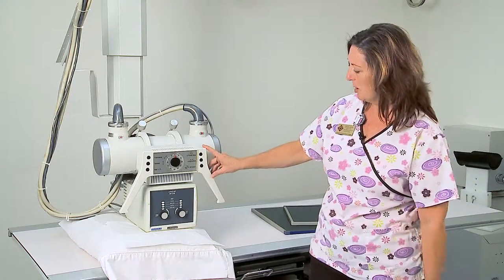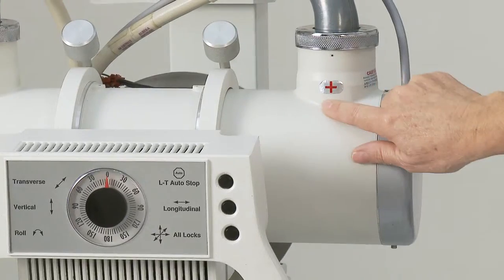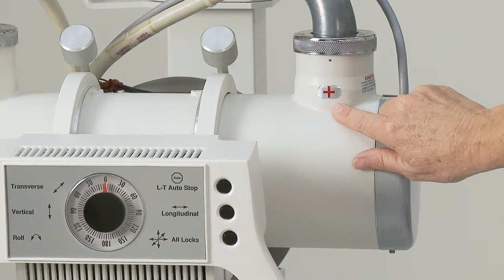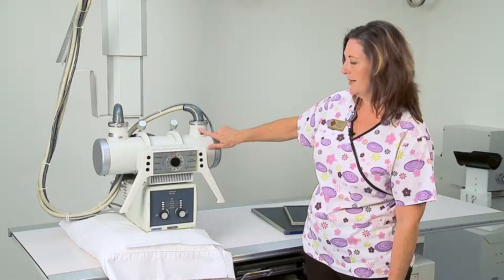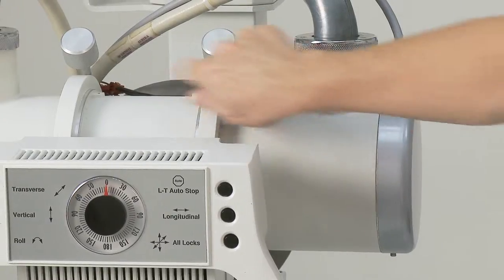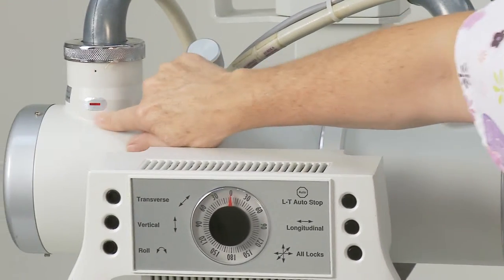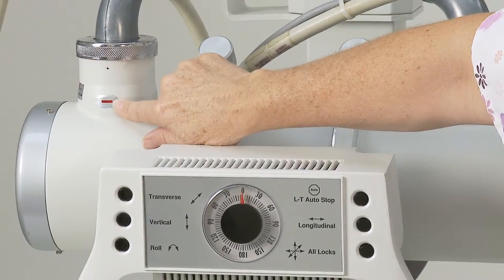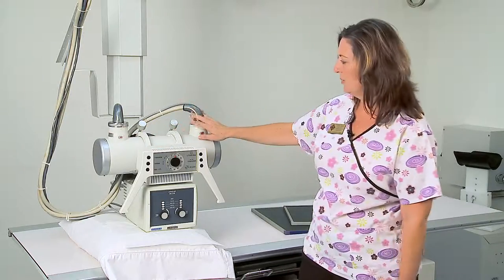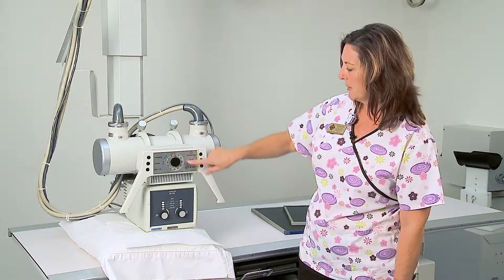The positive side of the x-ray tube is the anode. The negative side of the x-ray tube is the cathode. This is very important in imaging anatomy.